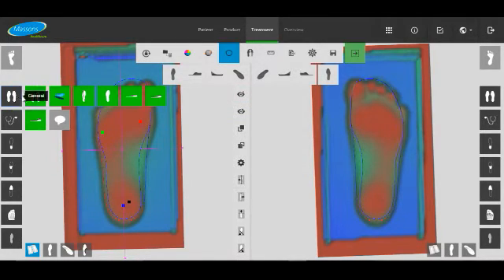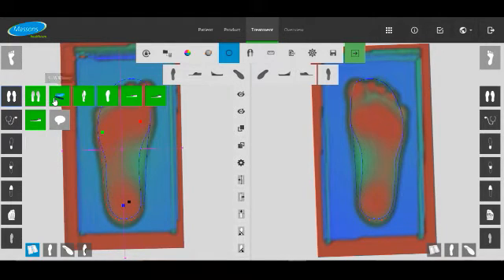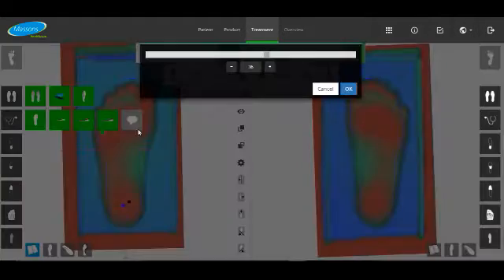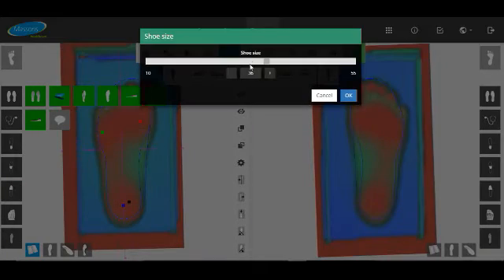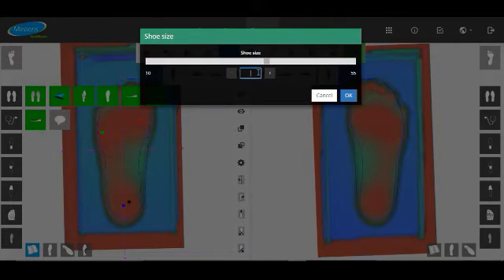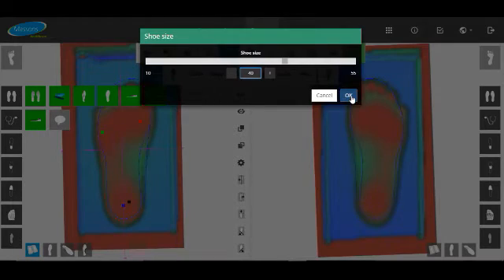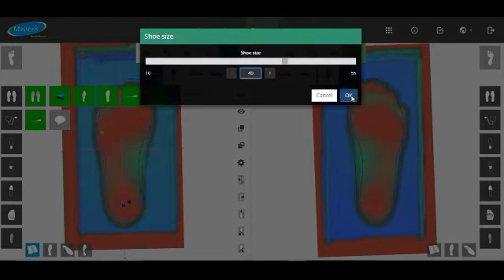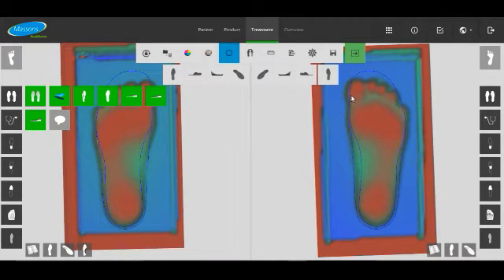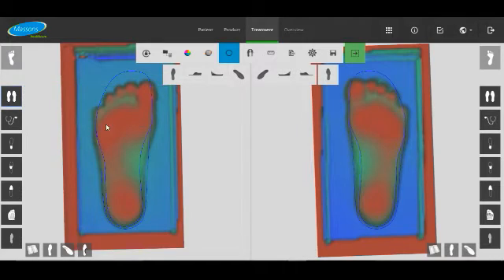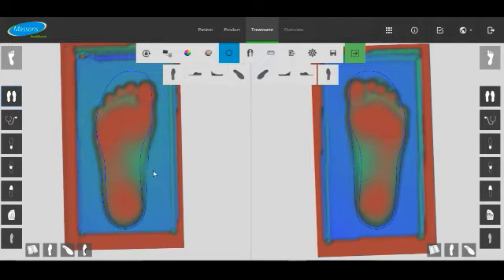The only thing that looks a little bit off is the size of the brand sole, so that's related to the shoe size. We'll make it about a 40. That looks a little bit better.